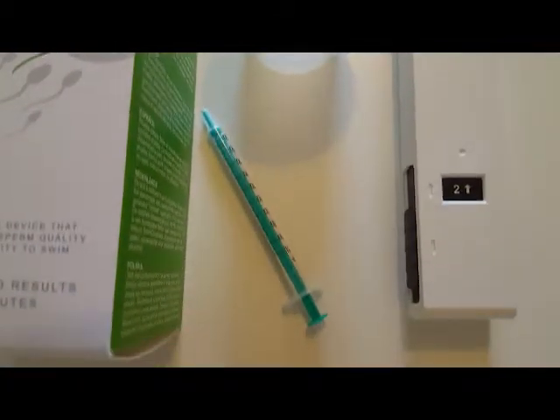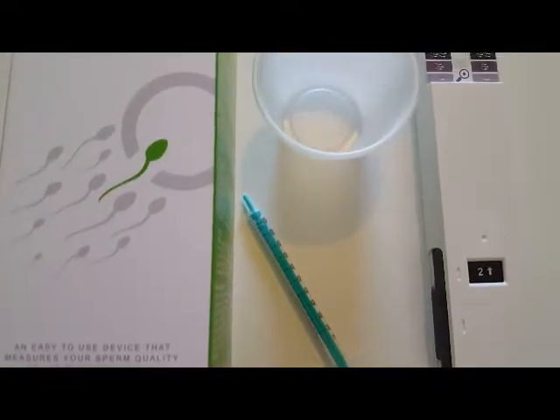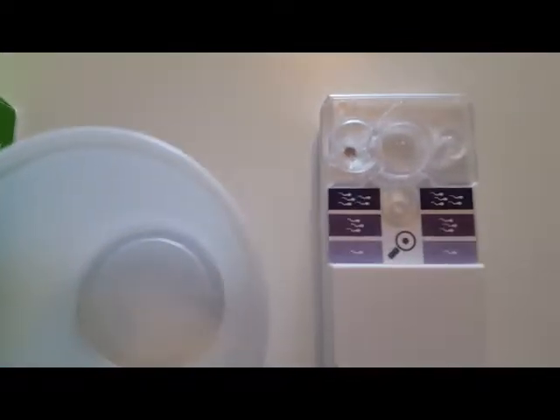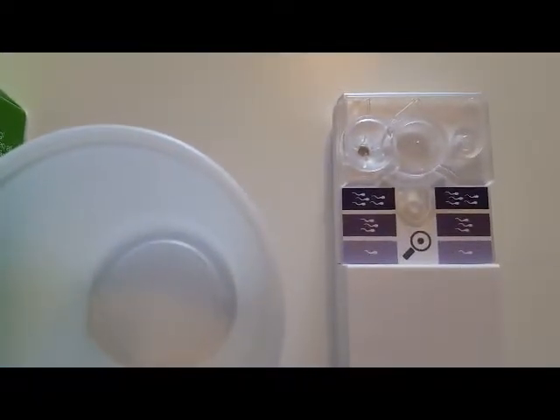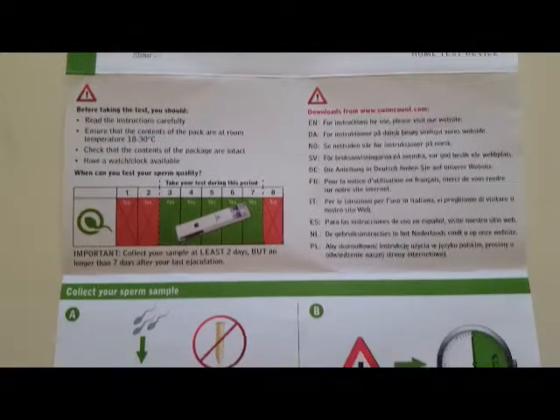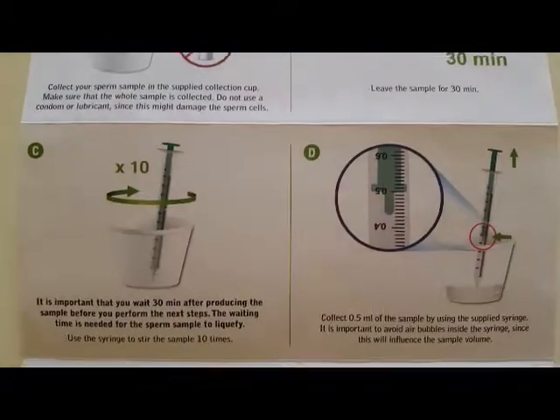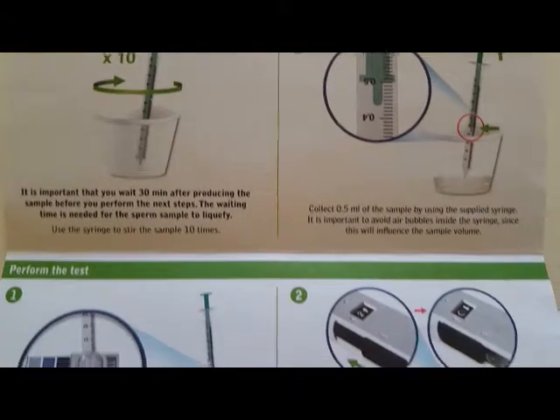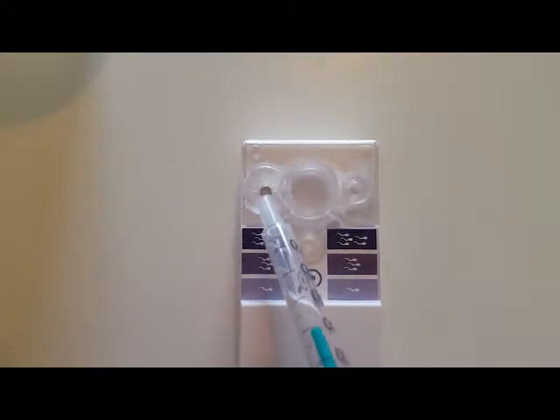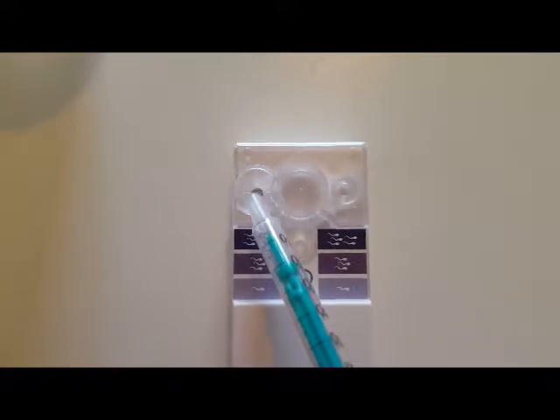There are a couple of important points to note prior to using this test. First, you should not ejaculate for two days prior to taking the test — this is to make sure the concentration of sperm in your sample is at its best. Make sure you collect the whole sample; if there is any spillage, wait two days and collect a fresh sample. After collecting the sample, leave it for 30 minutes to liquify, then stir it using the syringe provided. Slowly draw half a millilitre of the sample into the syringe and add it slowly to the well marked number one on the test device.